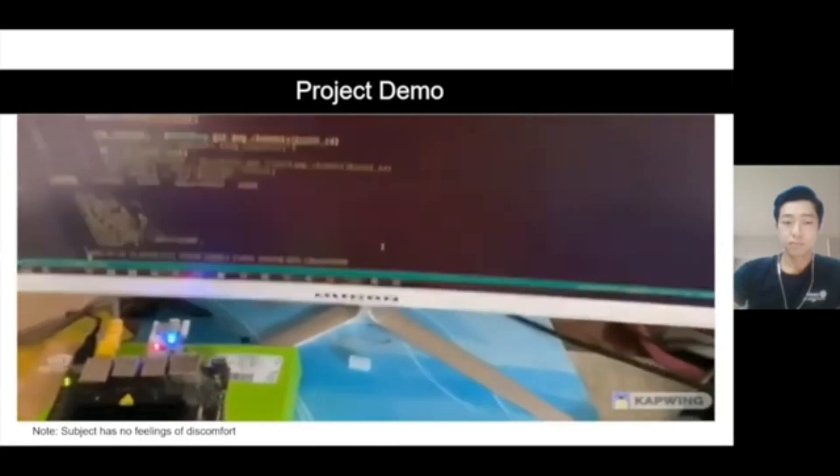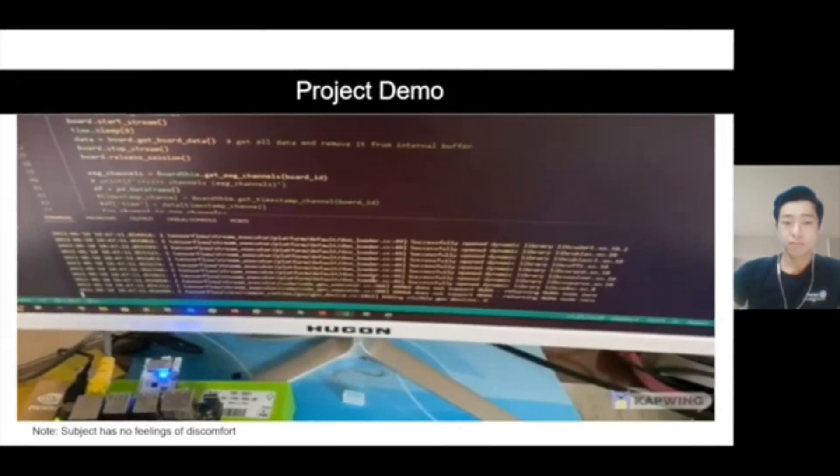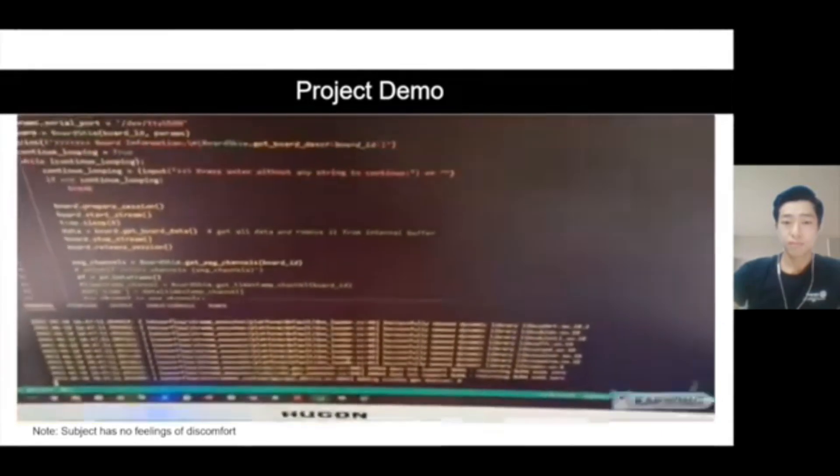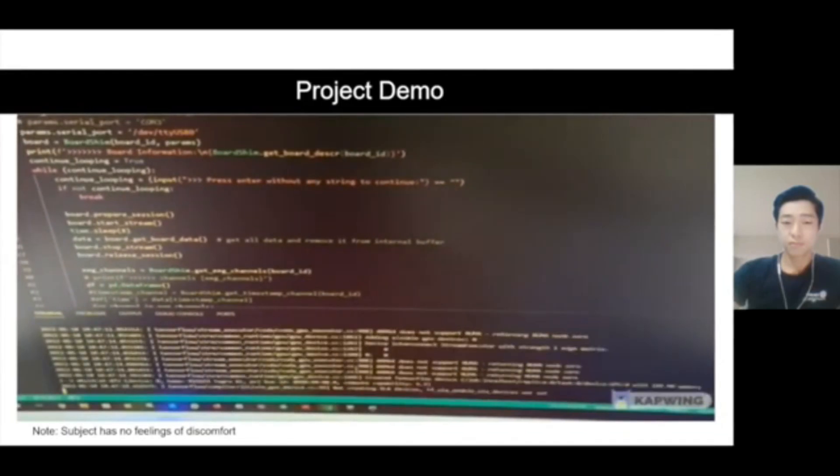And now we run the program. As you can see, the red light indicates that it is collecting EEG signal from the subject. Once the collection is done, it is now training using TensorFlow.